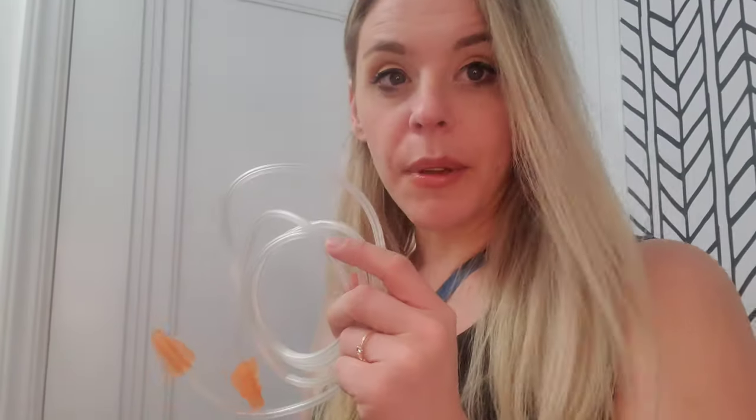It comes with a cord to connect the mouthpiece to the nebulizer. And then it comes with three different size masks as well as elastic cords to be able to attach it to your face. Masks come in three different sizes: infant/toddler size, child size, and adult size. They also include these really great orange elastics that help secure the mask to your face.